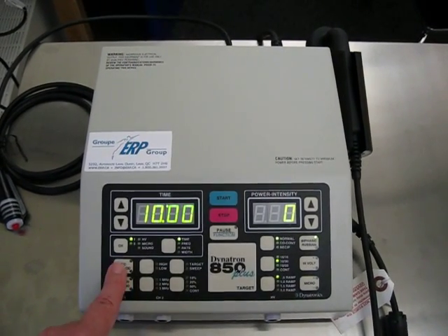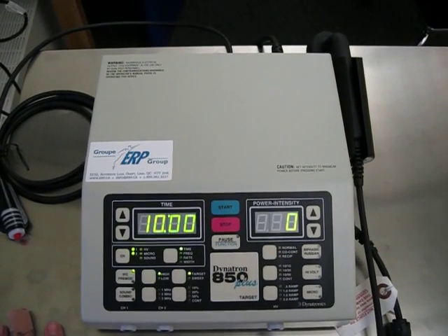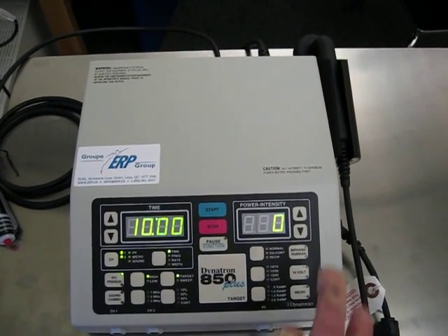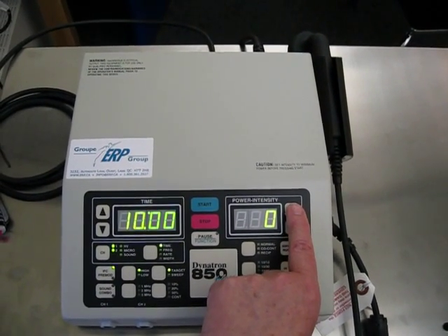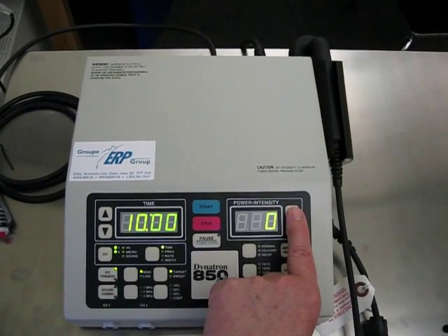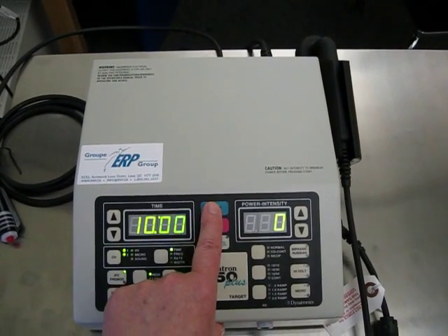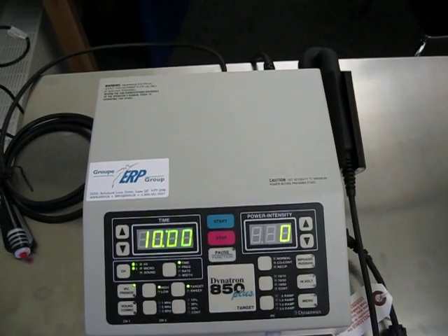Going back to the interferential — if we have this set up on a person, you can increase the intensity until they can feel it, and then you can hit start and the time will count down.